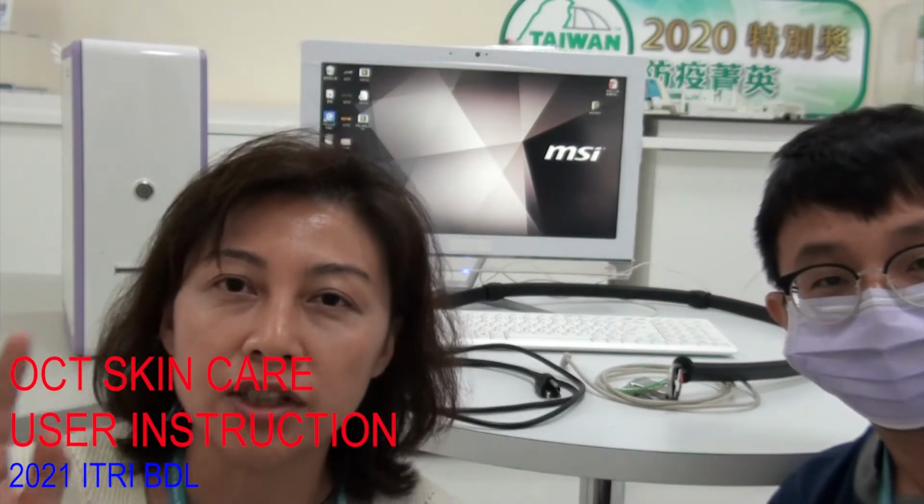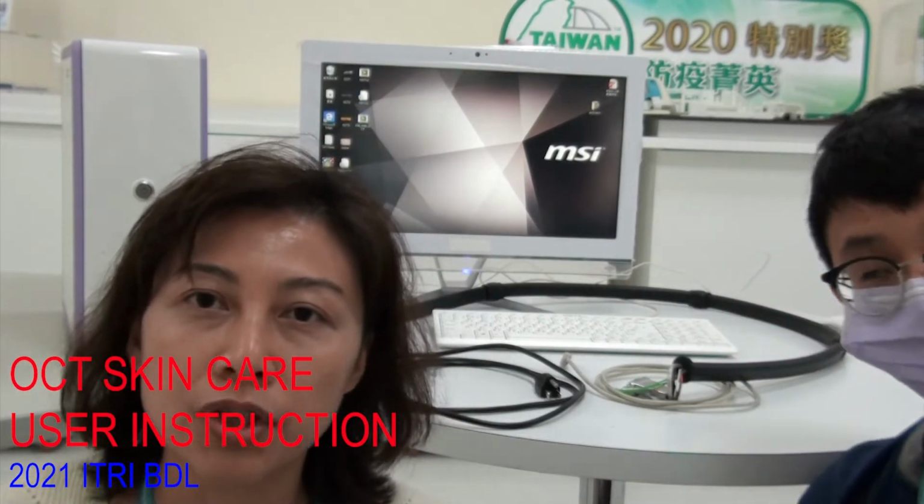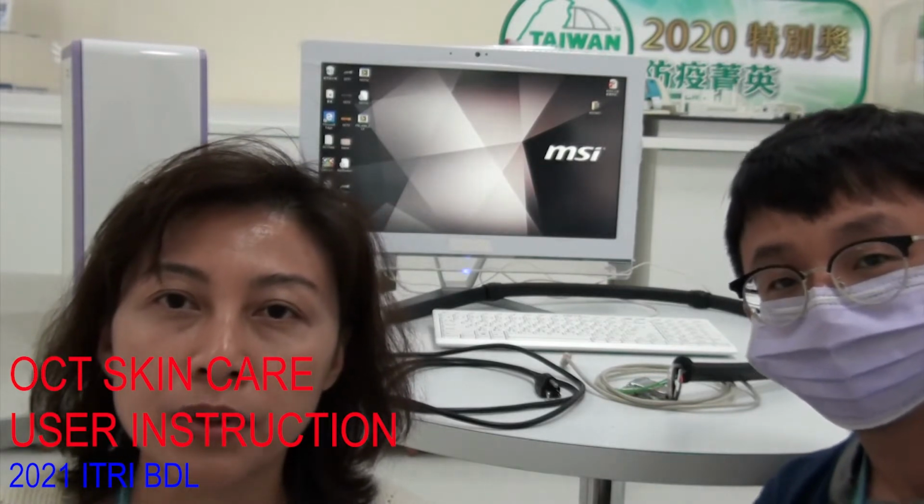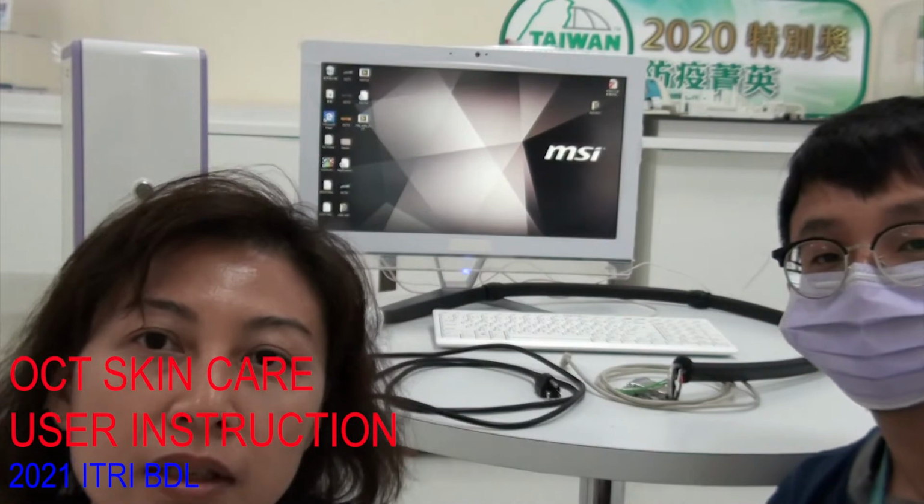He is our senior engineer, and today we will introduce how to install our OCT probe and how to use our OCT software.